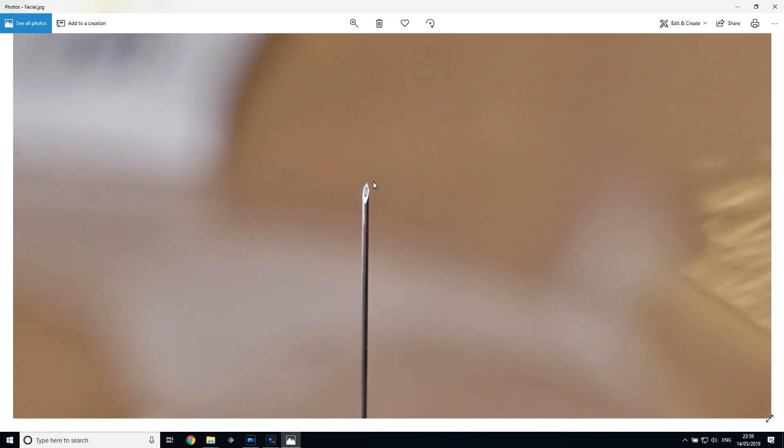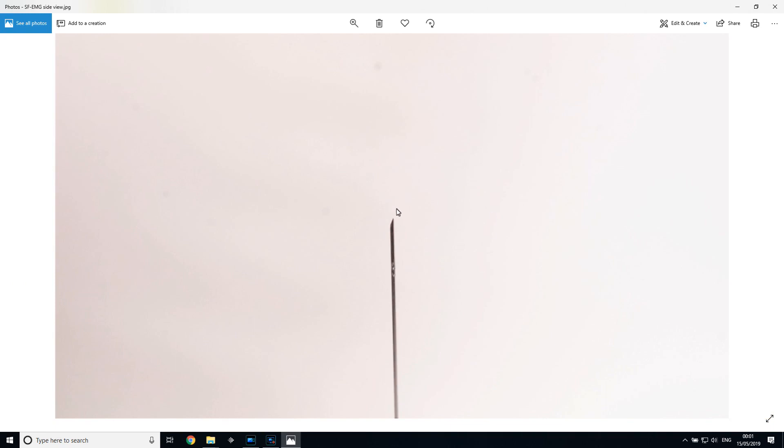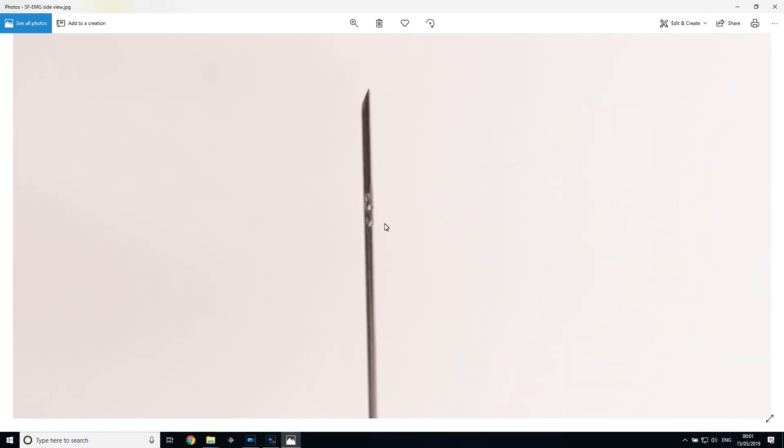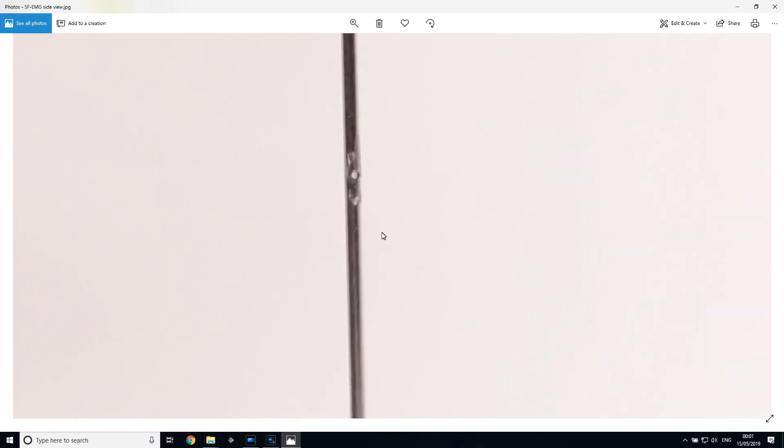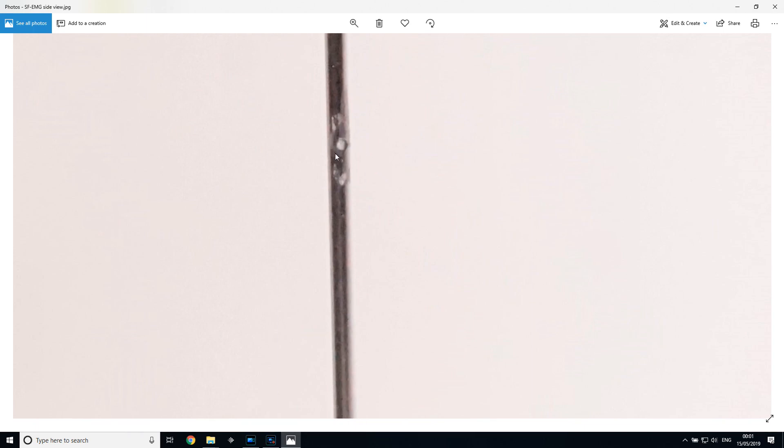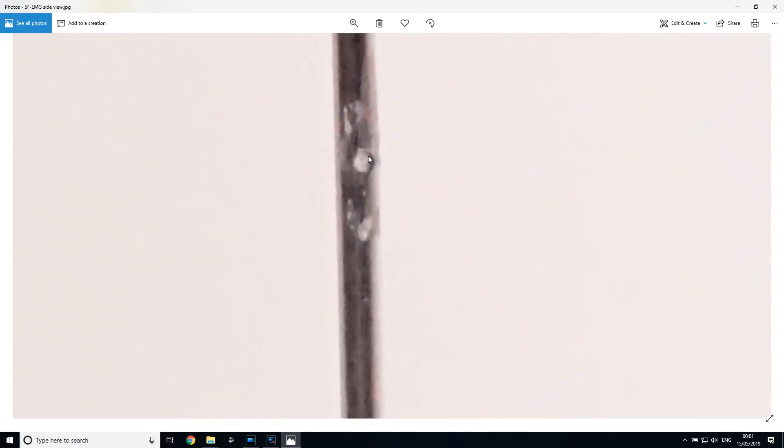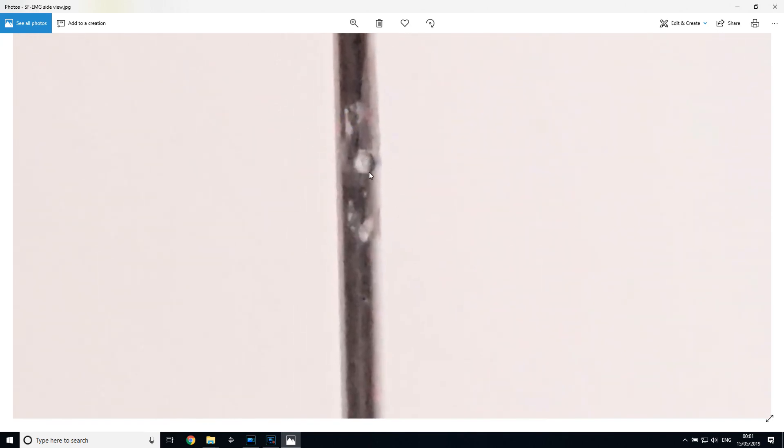The final thing I thought I'd just share with you is what the business end of the true single fiber EMG needle looks like. Of course, it does not occur at the bevel tip; rather, it occurs several millimeters below that. And you can see this small little orifice which has been cut out. I presume that these little markings on the shaft itself have something to do with the manufacturing process. And you can see here, this is the resin over there, this insulating resin. And this little yellowish dot just over there is actually the recording tip of the true single fiber EMG needle. It's about 30 micrometers in diameter.